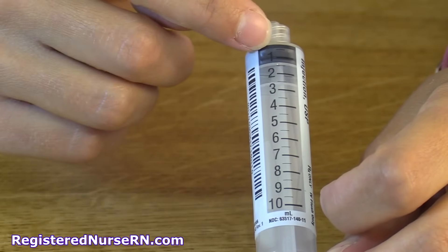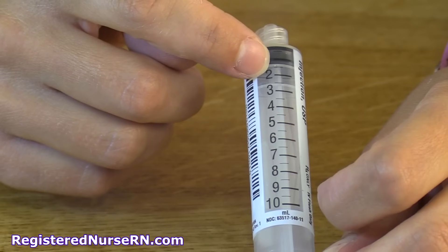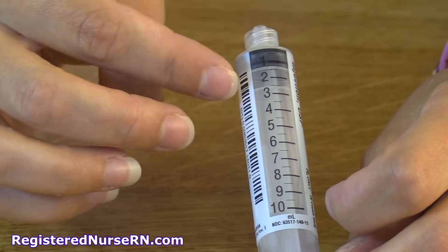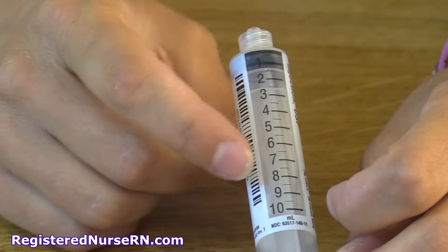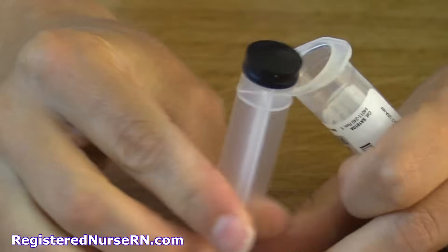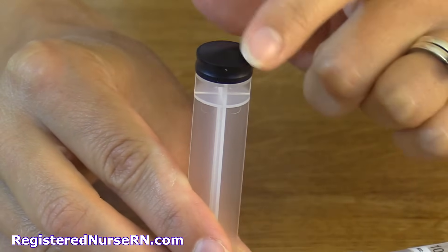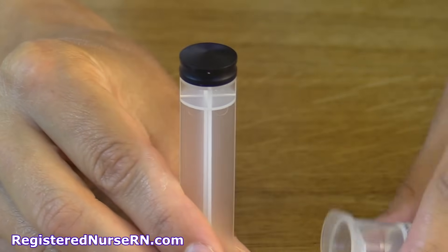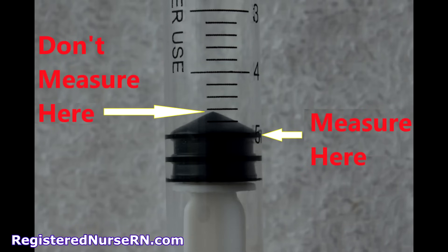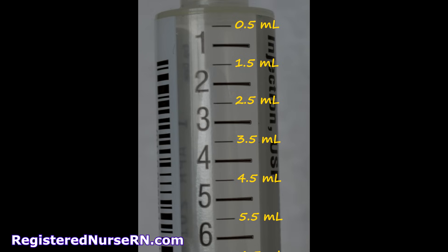On the scale, at the top it's 0, then you have a line in between, then 1, then another line, then 2, and it measures onward. One important thing to keep in mind is how to actually measure the fluid you're drawing up with the plunger. The plunger has a top part, a bottom part, and a beveled area. When drawing up medication, you line the scale marking on the barrel up with the top part of the plunger — not the beveled part, the top part.